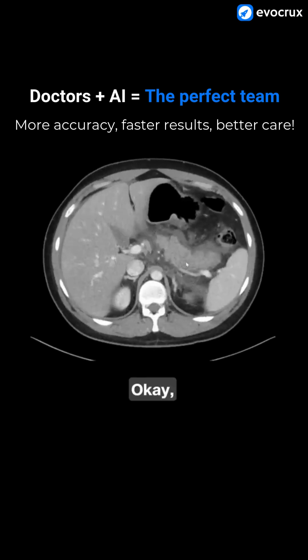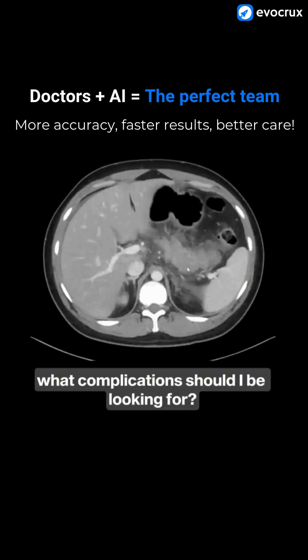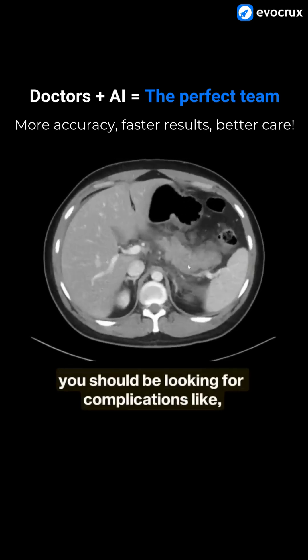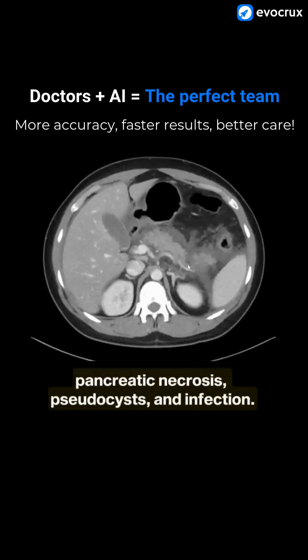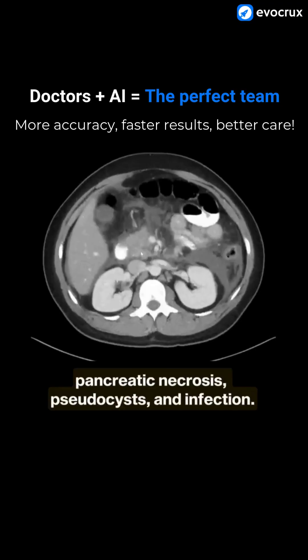What complications should I be looking for? Based on the scan, you should be looking for complications like pancreatic necrosis, pseudocysts, and infection.